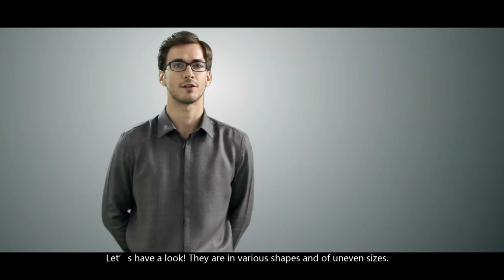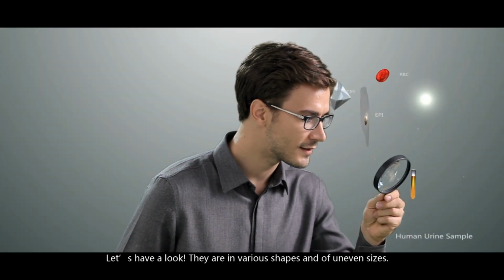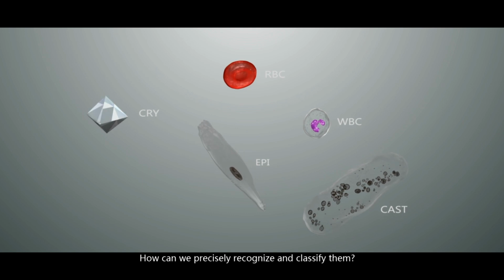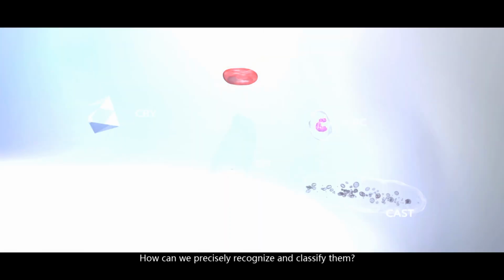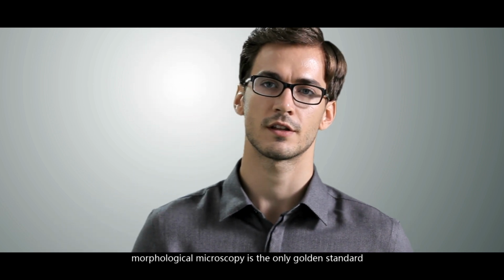What on earth is human urine? Let's have a look. They are in various shapes and of uneven sizes. How can we precisely recognize and classify them? Morphological microscopy is the only golden standard.